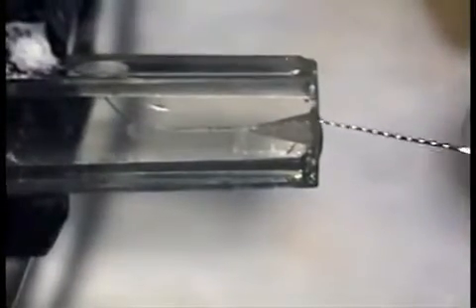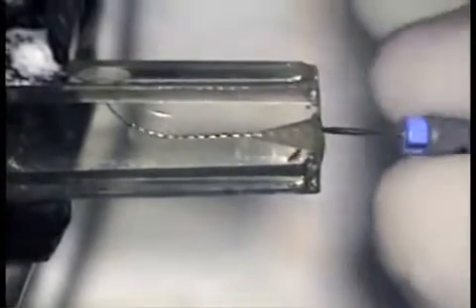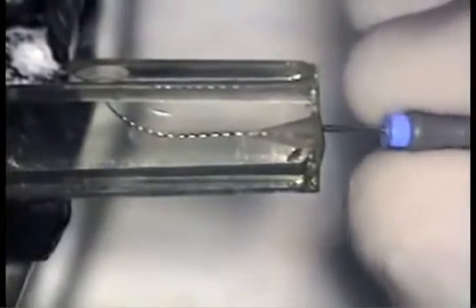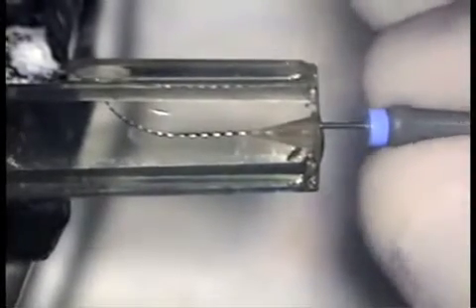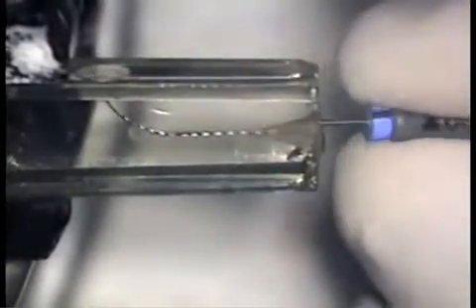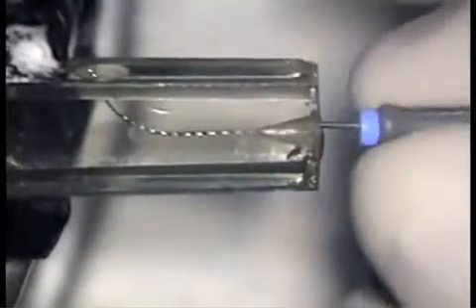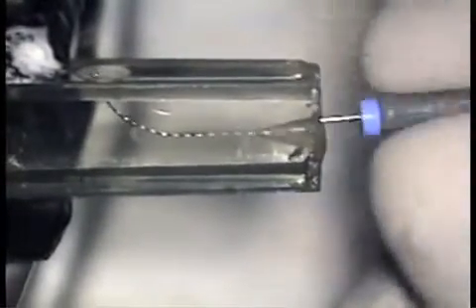What I want to show in this video is the relationship between the resistance an instrument, preferably a reamer, encounters and the degree of rotation that an instrument can undergo. Here you see the number 8 reamer placed into the canal in the plastic block, and with a little light testing using short strokes, so little resistance to both apical penetration and rotation is encountered that the instrument can easily be rotated through repetitive 360-degree arcs.